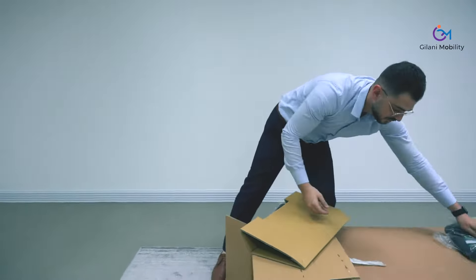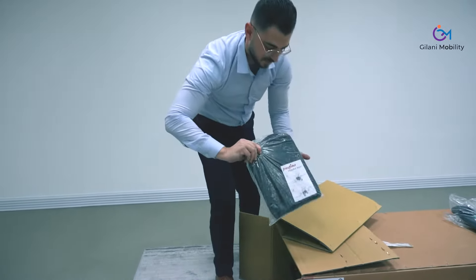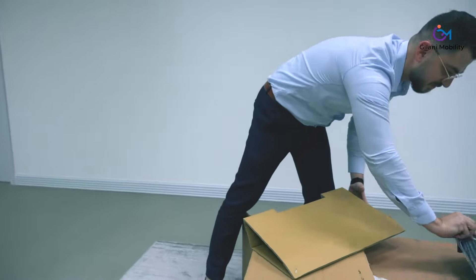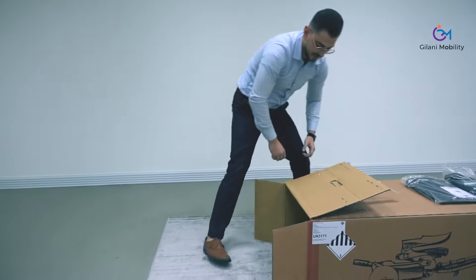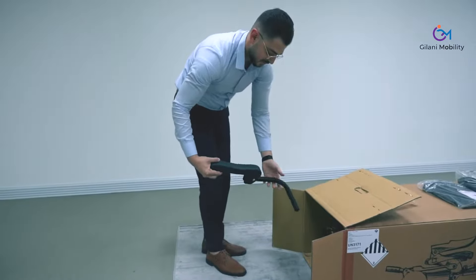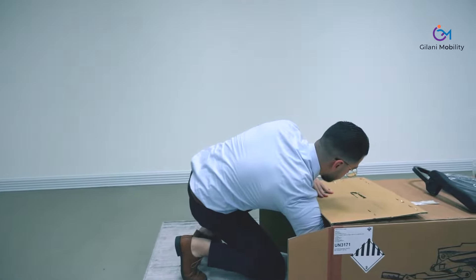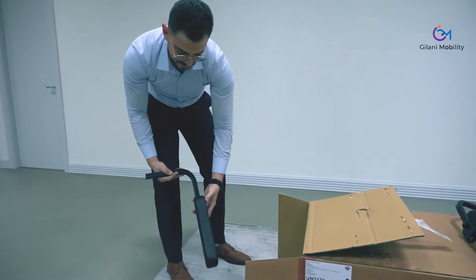You get your travel bags, storage bags, and a range of accessories. When you choose your Luggy series scooter you can, based on your requirements and needs, choose the right one for you. The Luggy series is the ideal travel companion. You have various options that you can add on to suit your travel needs — destinations, surfaces that you're going to ride on — you can add on as you wish and as you go.